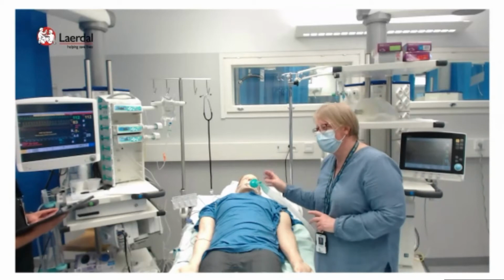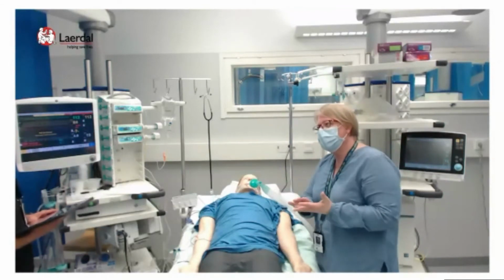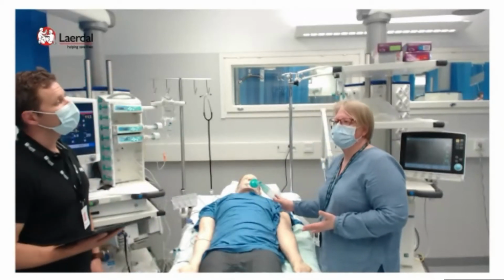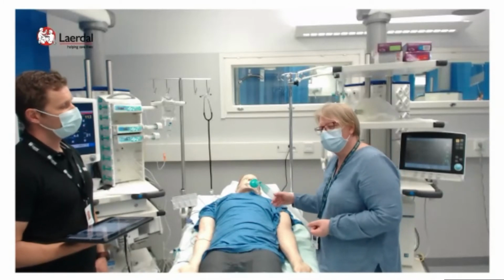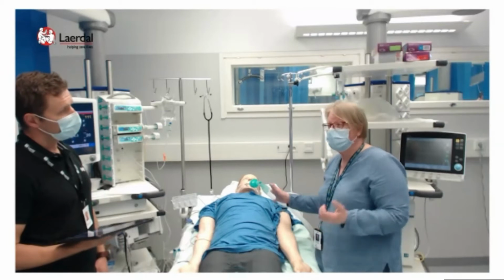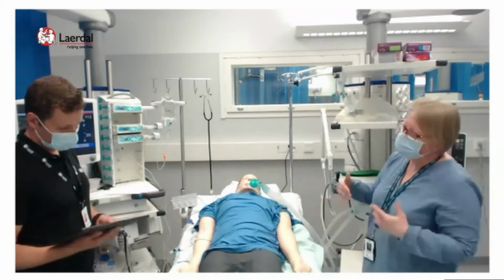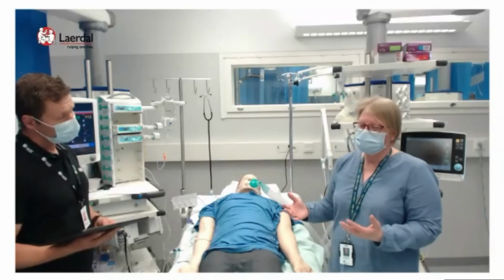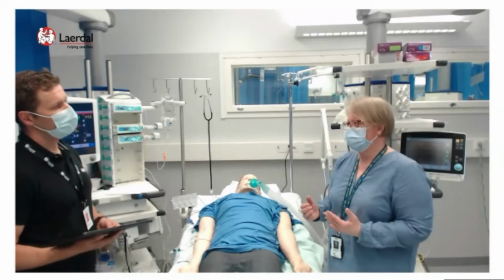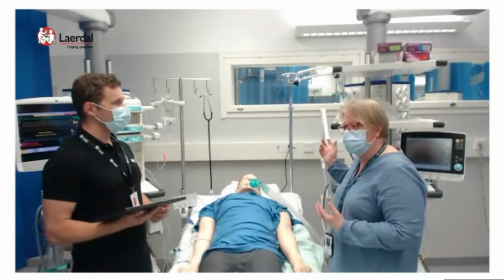What is important is to check the clinical status of the breathing. So always do your ABCDs. That is very important because the clinical examination and lung auscultation are a very important part of taking care of respiratory distress patients. So you can hear if there are new atelectasis or if there might be a pneumothorax. And bedside ultrasound is also important to rehearse so that a young doctor can start learning problem-solving skills. So what he should do is check the auscultation, maybe check the lung ultrasound, and then change the settings of the ventilator.